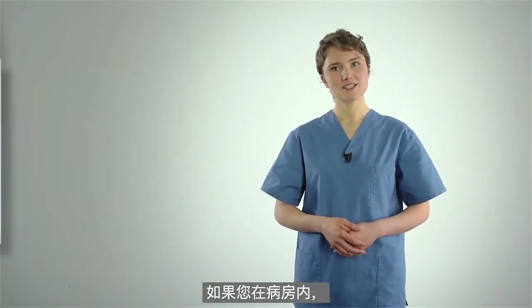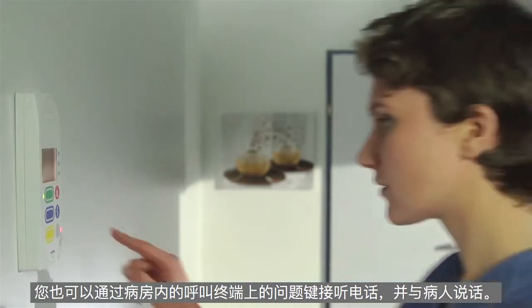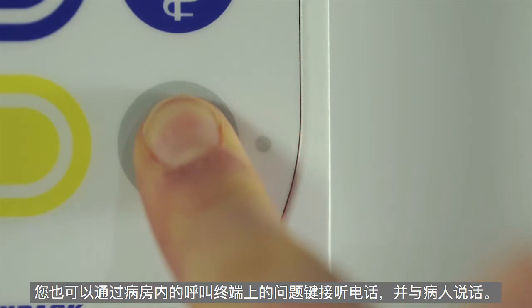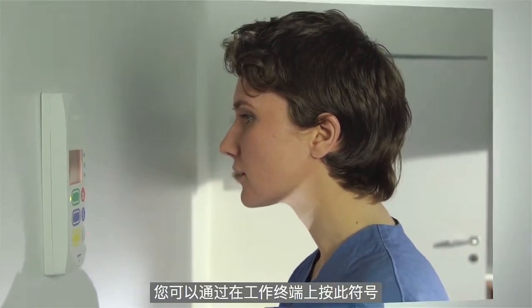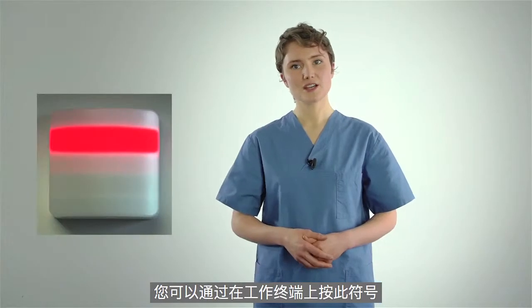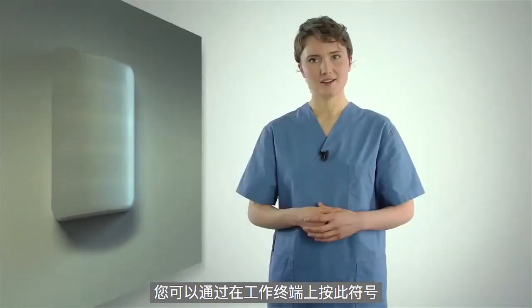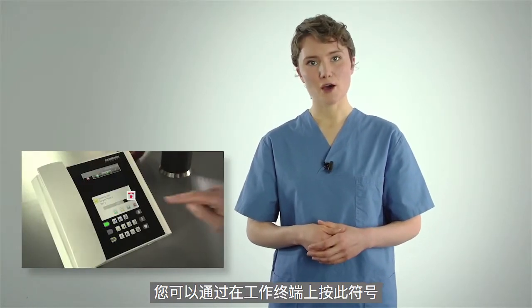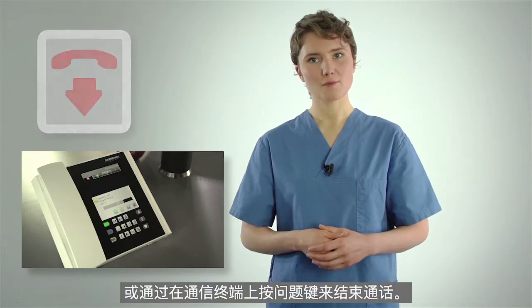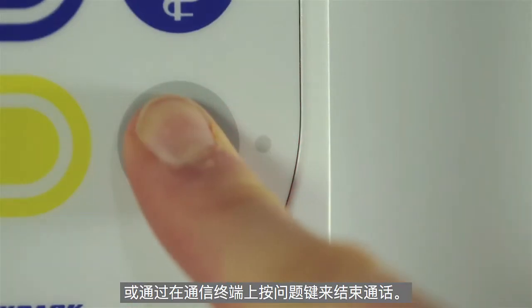If you're in a patient's room, accept the call by pressing the question key on the communications terminal and speak to the patient. Answering the call automatically resets it. You can end the call by pressing this symbol on the staff terminal or by pressing the question button a second time on the communications terminal.